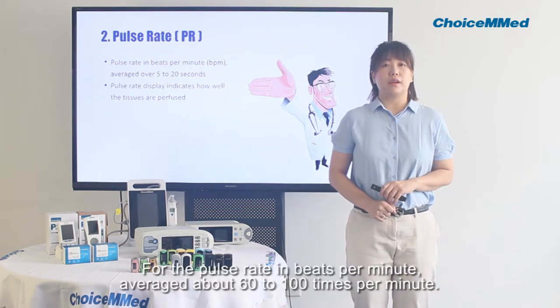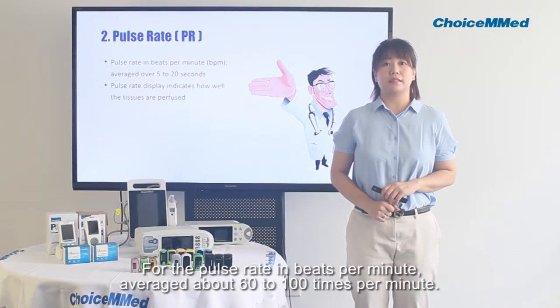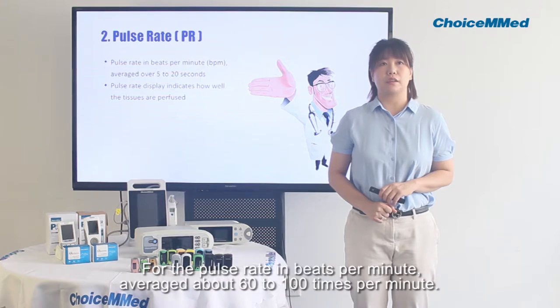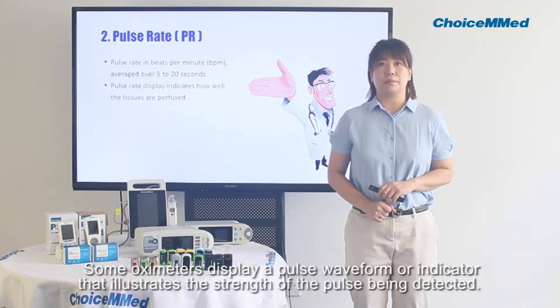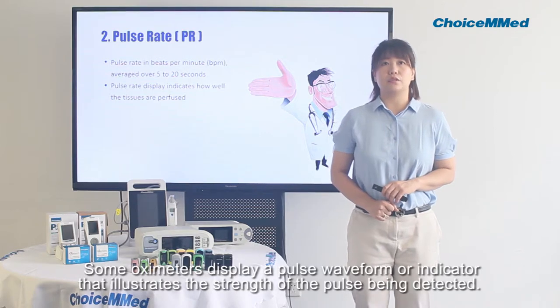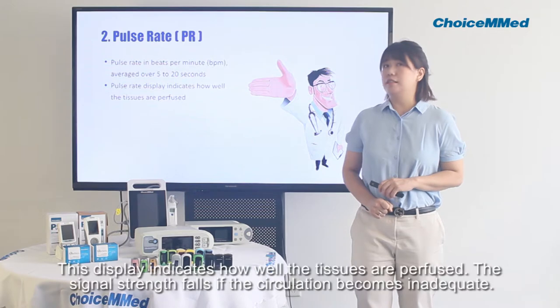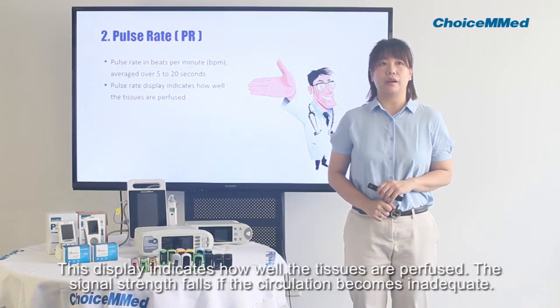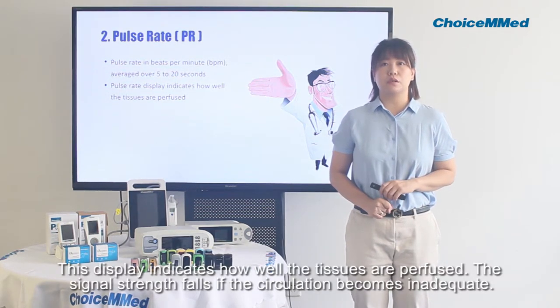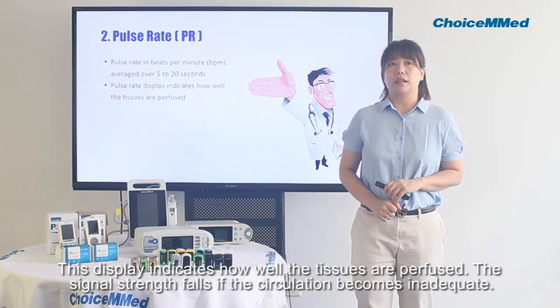For the pulse rate in beats per minute, the average is about 60 to 100 times per minute. Some oximeters display a pulse waveform or indicator that illustrates the strength of the pulse being detected. This display indicates how well the tissues are perfused. The signal strength falls if the circulation becomes inadequate.